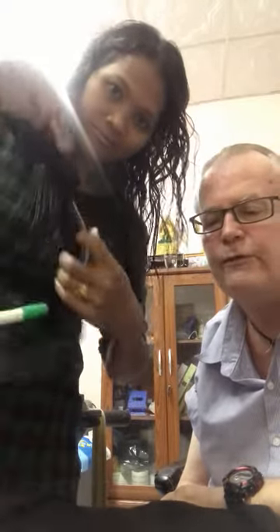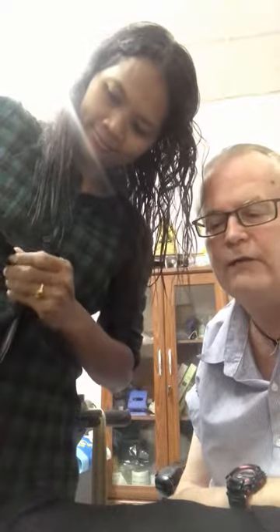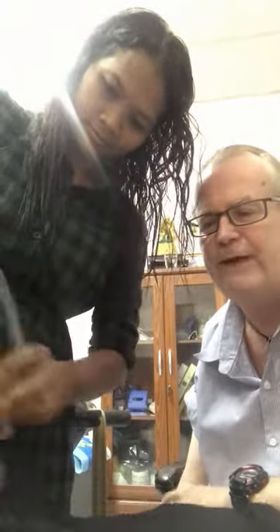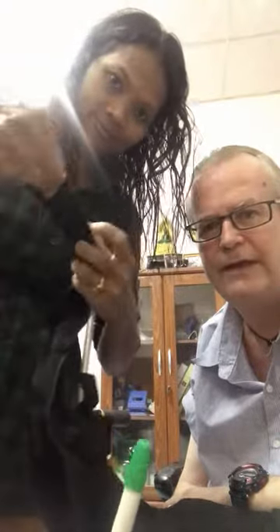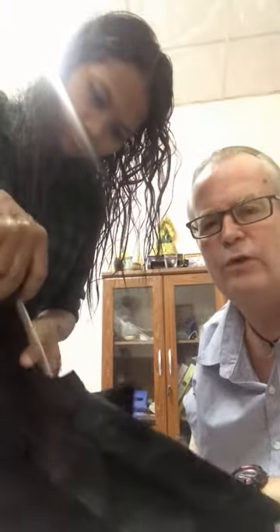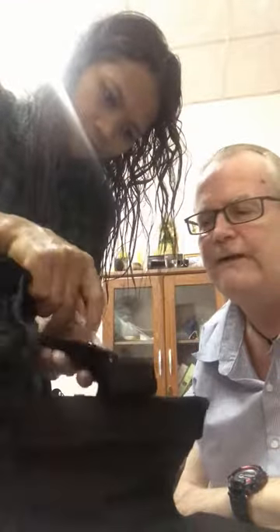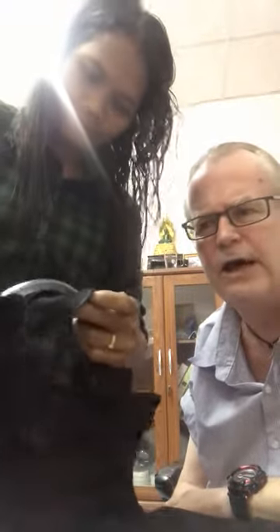Now, it's made of 100% cotton so it's washable. I tend to use two myself. I designed it because I found that when I did want to have a catheter bag cover, I ordered three and they really did not work for me at all. The material was far too light and the fixings weren't very helpful, especially if you had to tie anything up. It just didn't work very well for me at all.